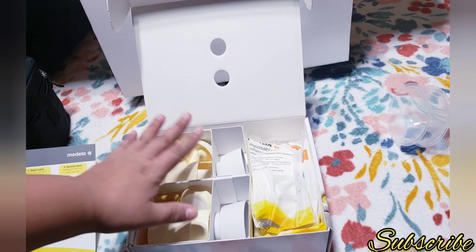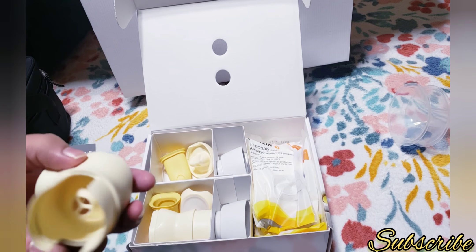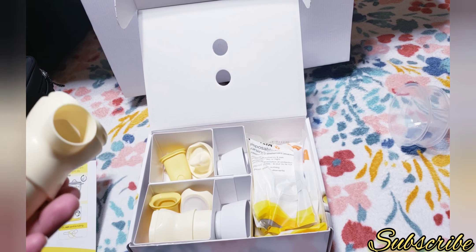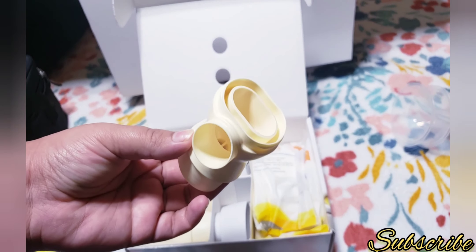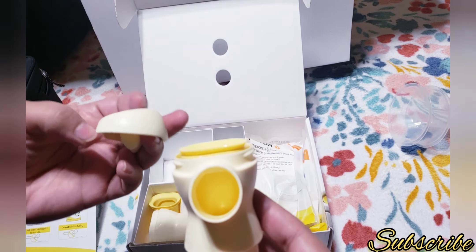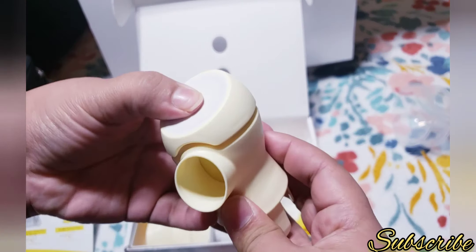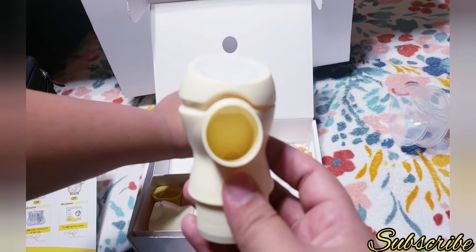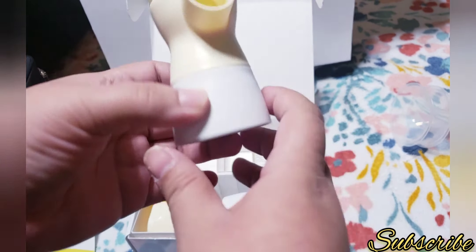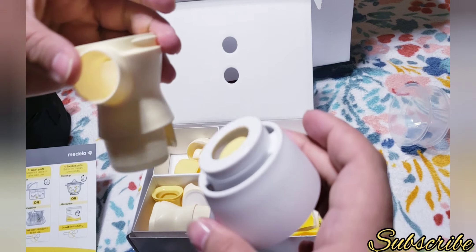As you can see, these are all the parts of the Medela. It comes with a lot of parts, and that's a con for me — I don't like breast pumps with tons of parts. I prefer easy, simple parts that are easy to wash. I think this one goes here, and the white part connects to this, and then the bottle connects here. It's a lot of steps, and for a new mom you don't have time for all of this.